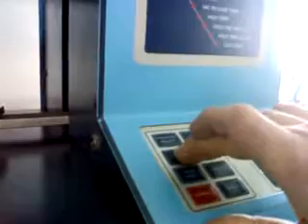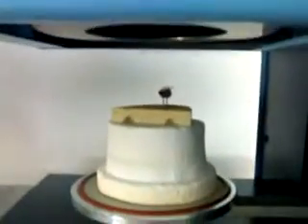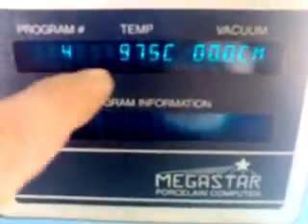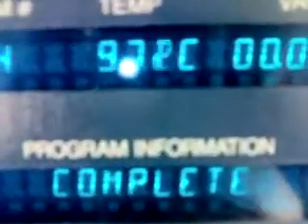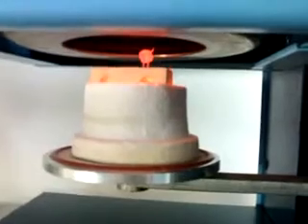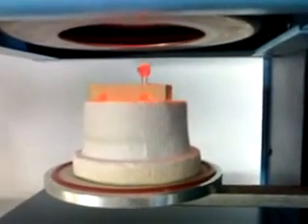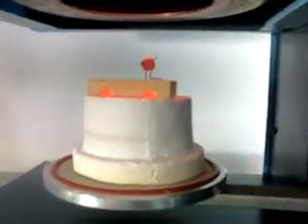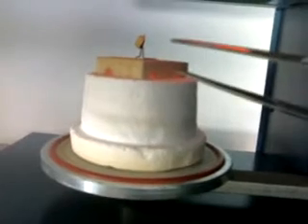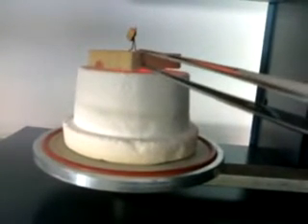We start the oven. You can see it's in a drying position now. My program starts off from 500. My program is set at 974 — these are the centigrade readings. Now the program is complete; it has released vacuum, because this goes under vacuum. And here it comes out — see, it's red hot. There we have it, my coping hanging on there. And that's it with our second bake of porcelain. I'm going to place it on my rapid cooling tray.